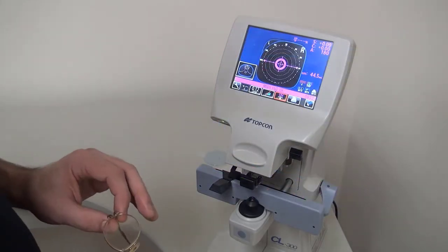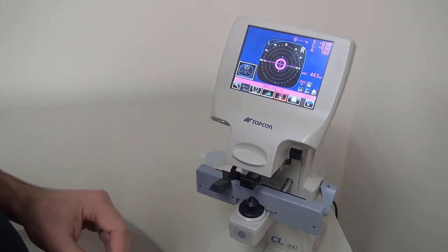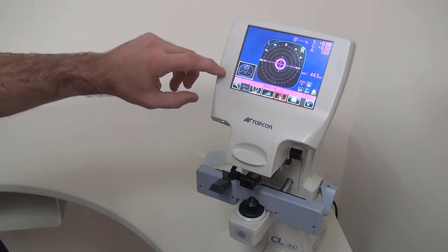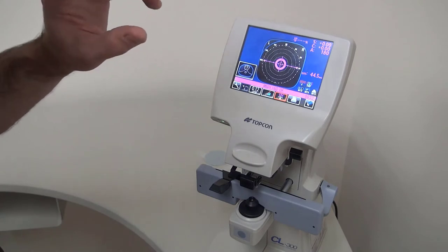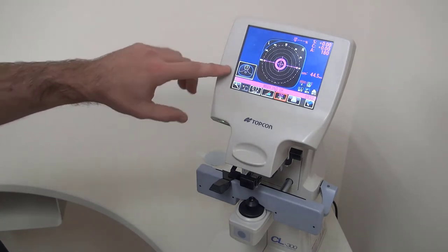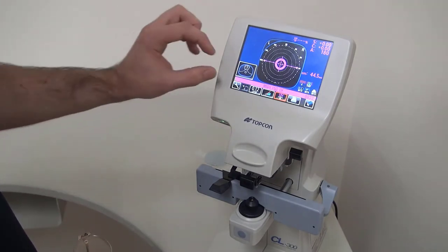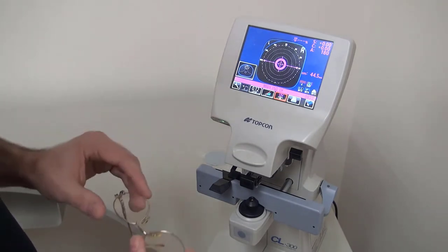Now I'm going to measure a pair of progressive lenses. We're on auto detect here, so it'll automatically detect the progressive when I put the lens on there. However, there is an order to the process to make that work. So if you look at the target here, you can see the number one blinking, and this image is showing the near channel.